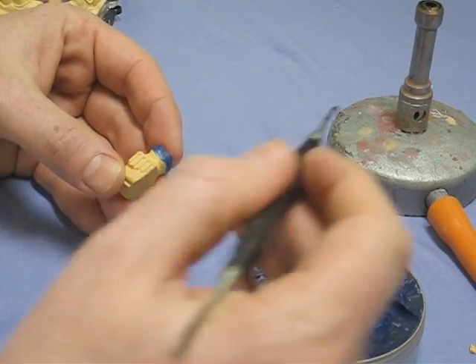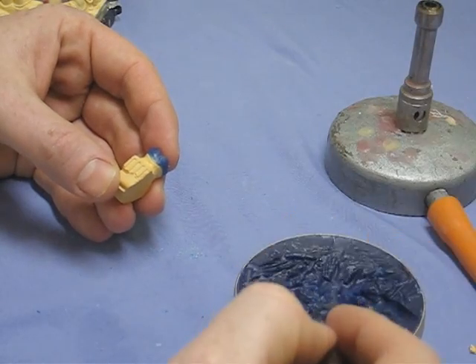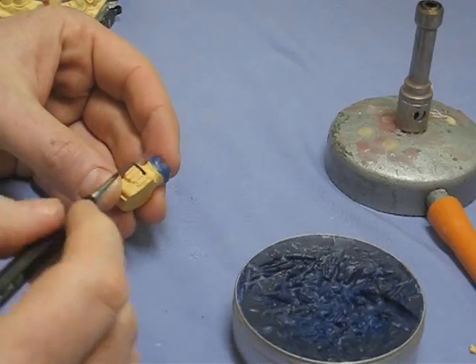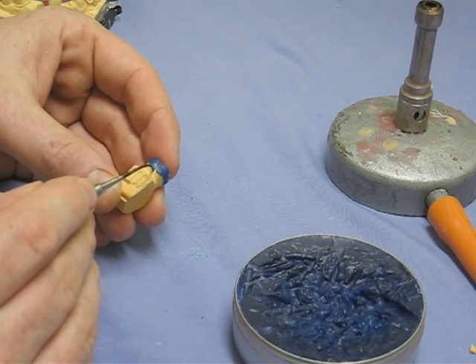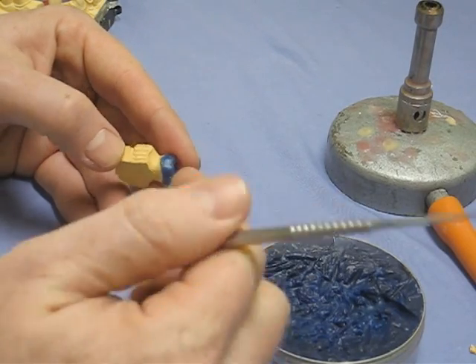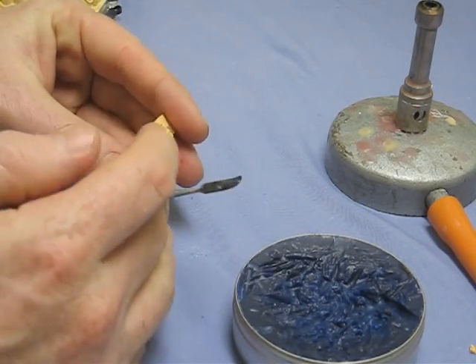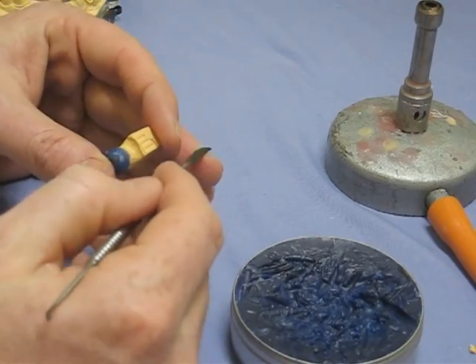The first thing that's done before casting is the margins check. It's the most important part of the restoration really. So we run around it with a hot wax knife just to make sure that the wax hasn't shrunk away from the margin at all.